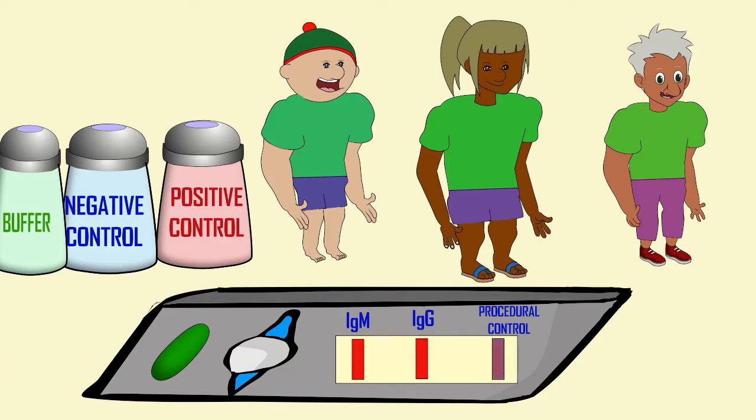If the test reads positive, that would be a danger of what is called a false positive, that you would potentially tell a patient that they have coronavirus when in fact they don't. So you would run a negative control, something that you were expecting will give a negative result because it should give a negative result. If it gives a positive result, that's a problem, that's a false positive.